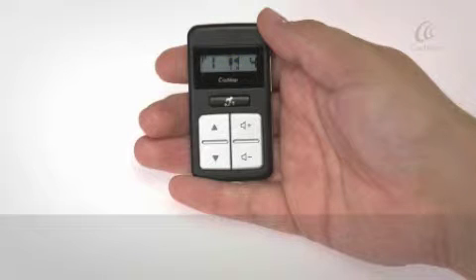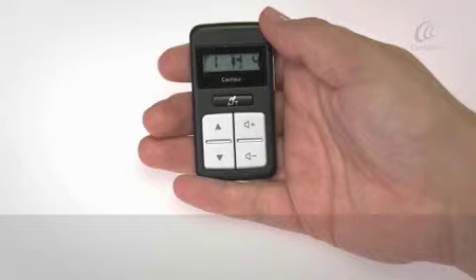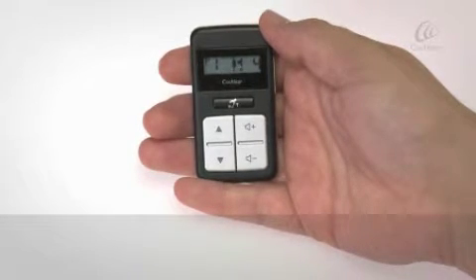If telecoil was turned on, it will be turned off automatically. While the audio accessory is connected, use your remote control to turn the accessory off and on again.